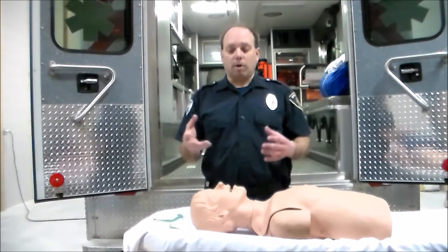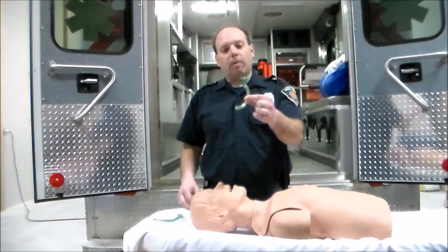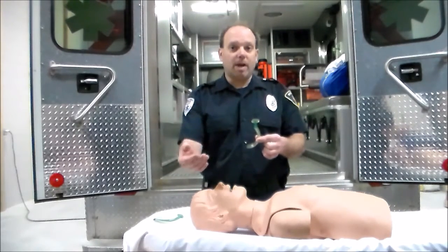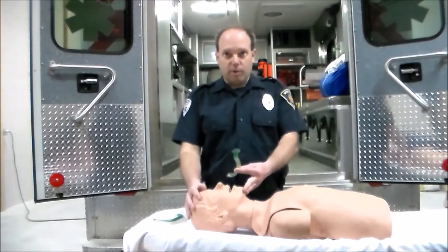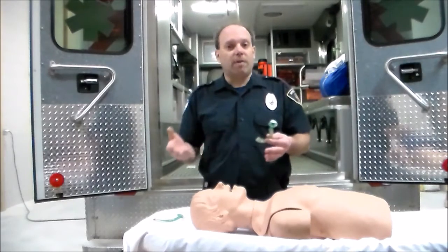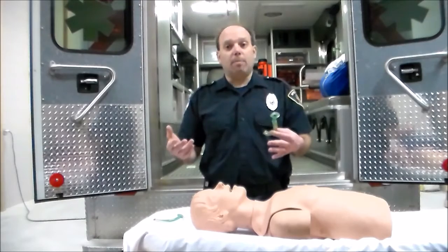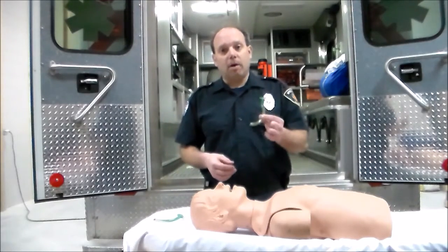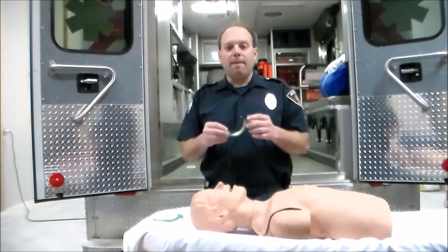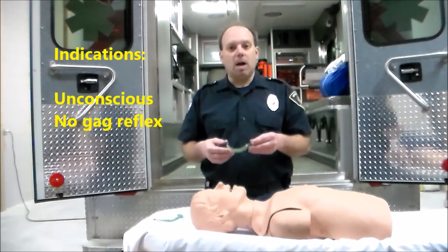Our next part, we're going to discuss some airway adjuncts — this would be an oral pharyngeal airway. The idea of the oral pharyngeal airway is to help control the tongue for a longer period of time than a basic airway maneuver. If the basic airway maneuver didn't work well and you're not able to ventilate the patient, we may need to go to an oral airway. Indications include the patient being without a gag reflex — basically, they have to be unconscious.